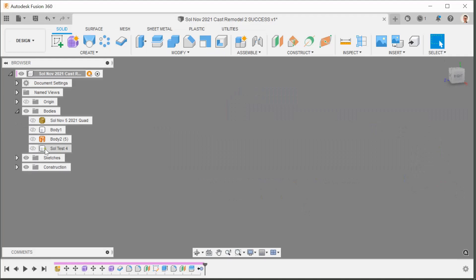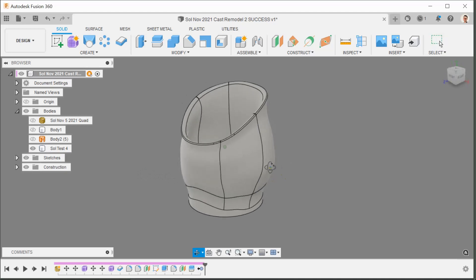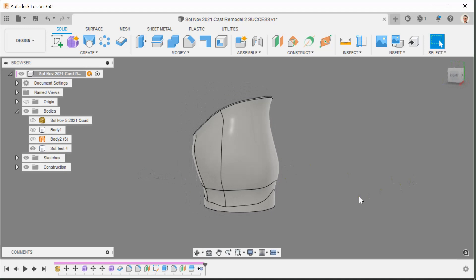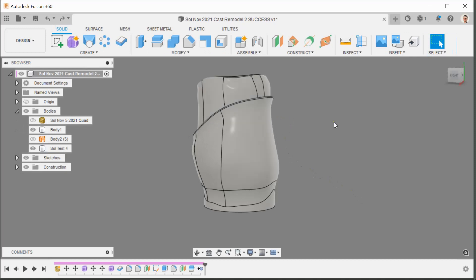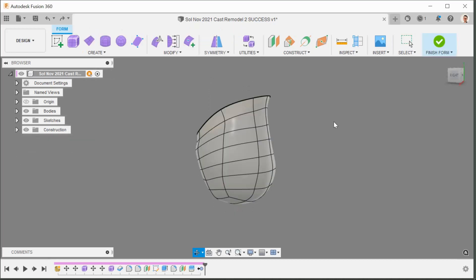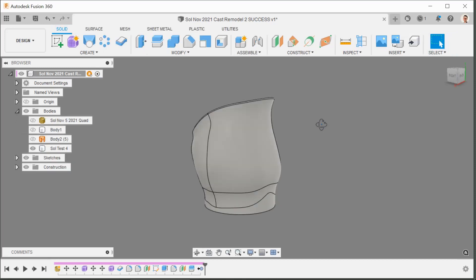When you're finished, come up to end the create instance and go back into normal modeling space — Finish Form. The earlier body now appears. Let's look inside at the back, then I'll press Ctrl Z repeatedly to go back to the beginning so we can compare — that was the starting body, this is where the air gap was — and then Ctrl Y to go forward. There we go.